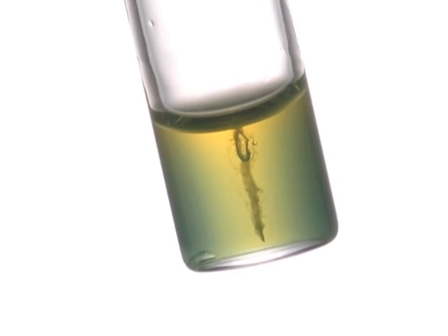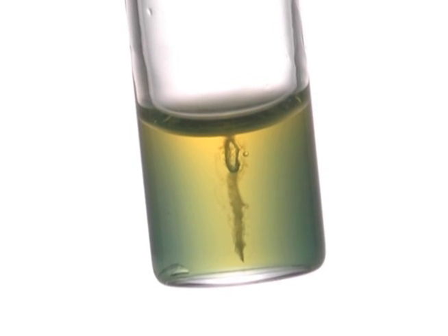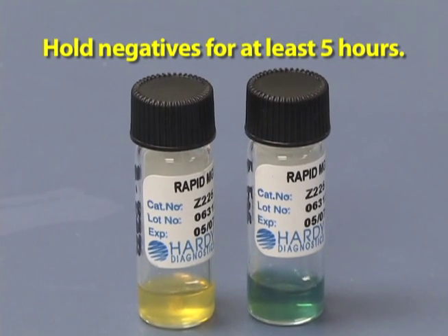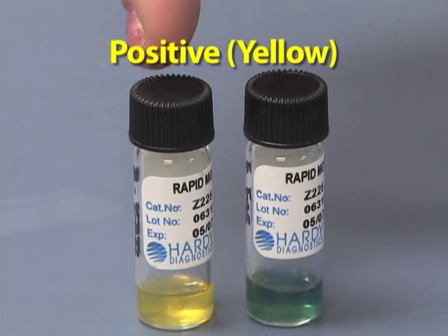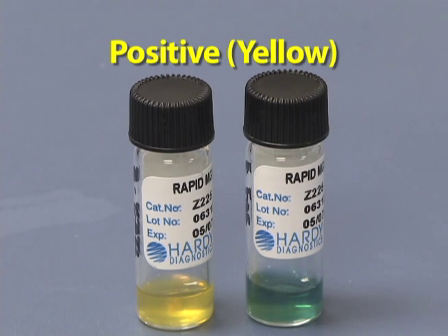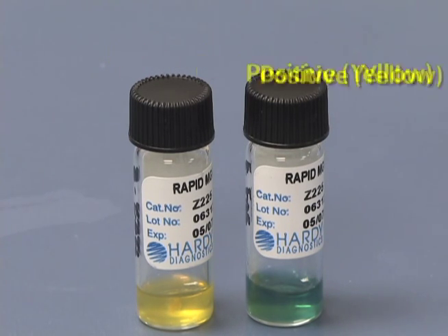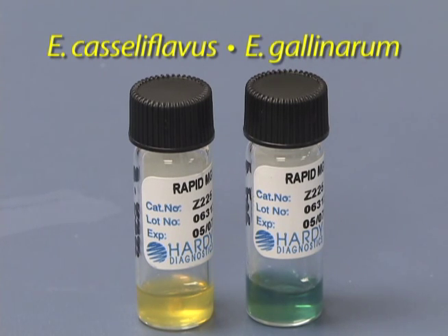Positives may be determined as soon as a yellow color appears along the stab line. Hold the negatives for at least five hours. A positive or yellow result indicates that you have a non-pathogenic species of enterococcus, which would either be casseliflavus or gallinarum.